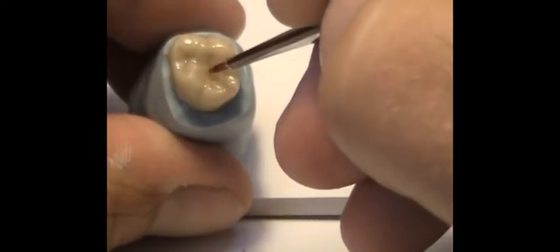Say you wanted to be heavier-handed — I'll shake up some red-brown and do the same thing with that stiff brush with the little tip. And you can see the difference — you can see the intensity. It's just a small amount of material. You've got to be so careful because this stuff is so intense. But I just want to show you that if you really wanted to darken them, you could darken them with the red-brown.